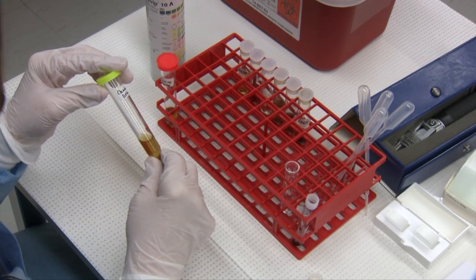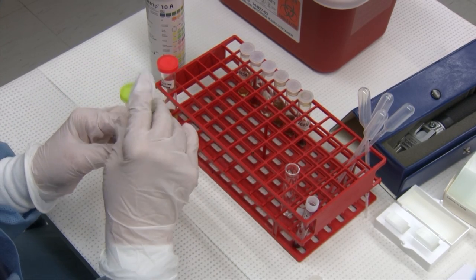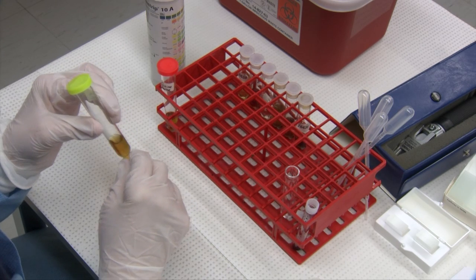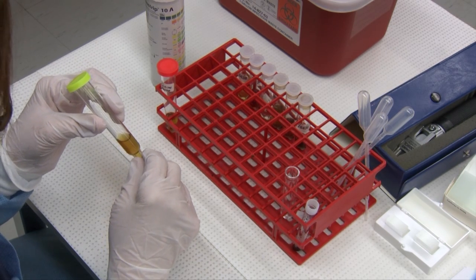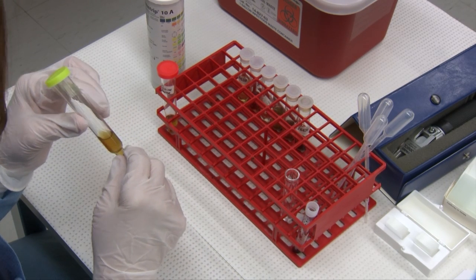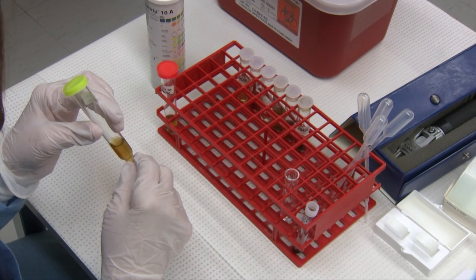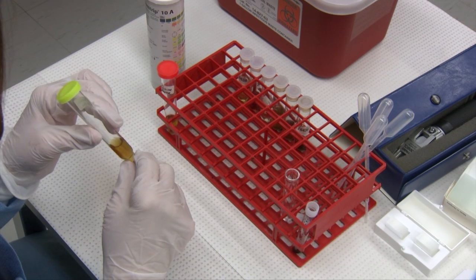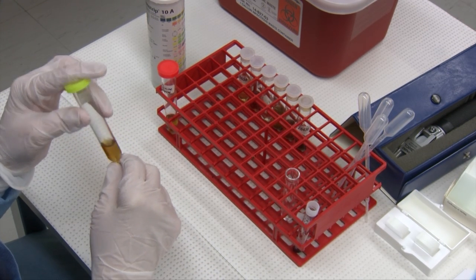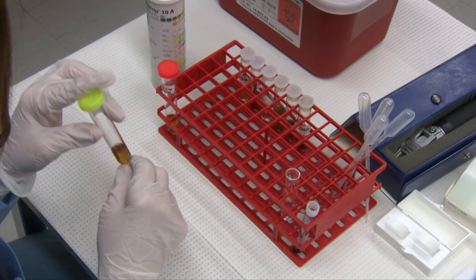It's important to analyze your urine as soon as possible after collection. That's not always possible, so you'll need to refrigerate it. If you do refrigerate your urine, you need to let it warm for 30 minutes before testing. This is so that your strips are meant to react at room temperature, and it may help redissolve some particles that have formed because of refrigeration. Be aware that crystals may form in a urine that has been refrigerated.